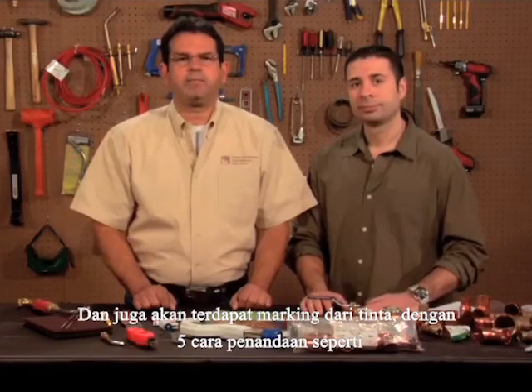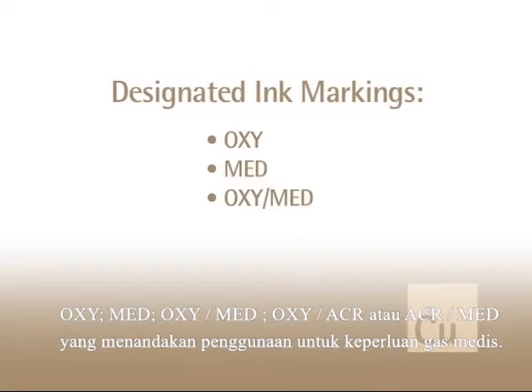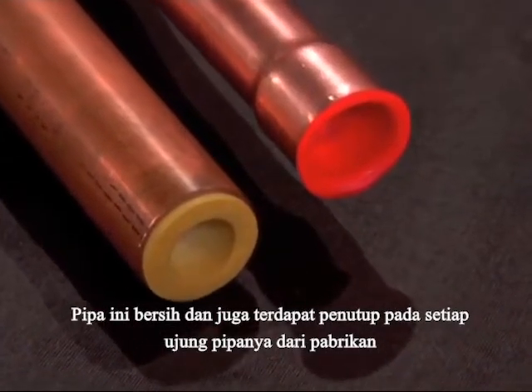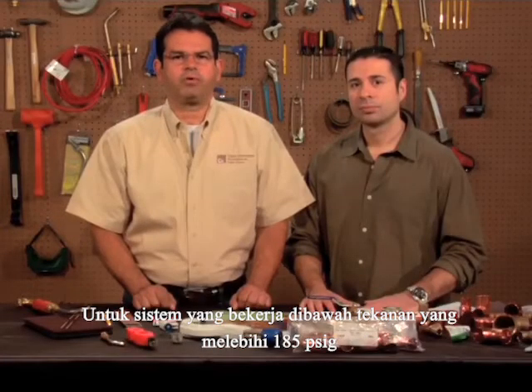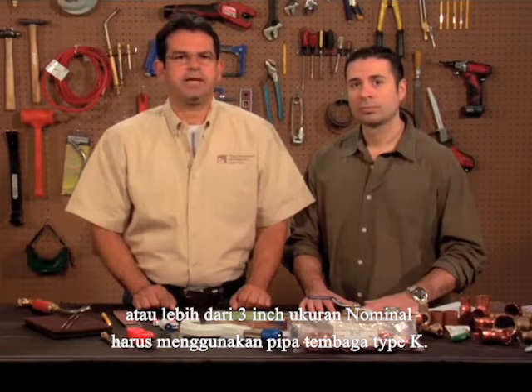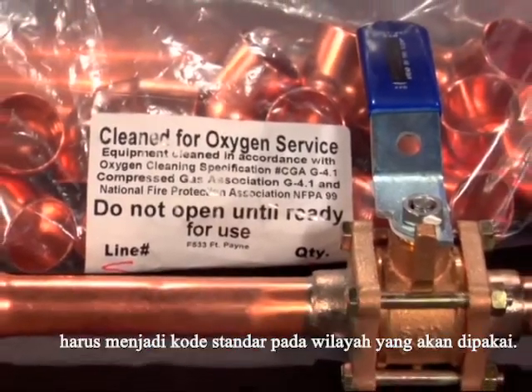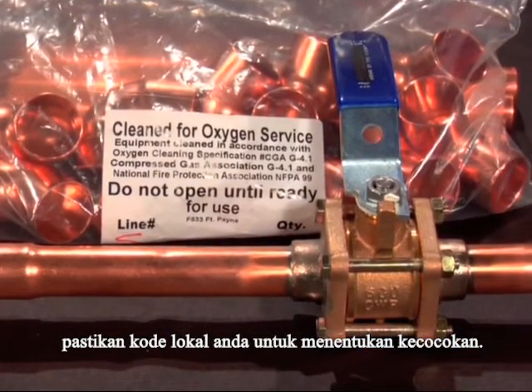These will include an ink marking in any of the following 5 ways: OXY, MED, OXY/MED, OXY/ACR, or ACR/MED, signifying that it is for medical gas use. The tube is cleaned and capped at the factory to protect it from any contamination. For systems operating at pressures over 185 psig or more than 3 inches nominal size, type K copper tube must be used. Any valves and fittings approved for medical gas must meet the code and standard for your area. Be sure to check your local code for compliance.